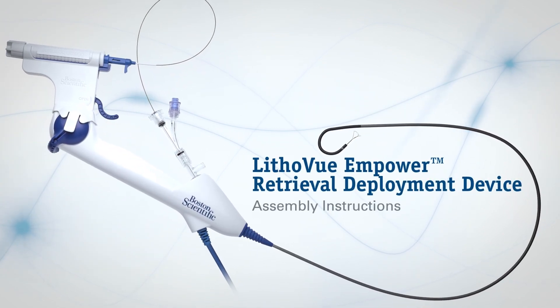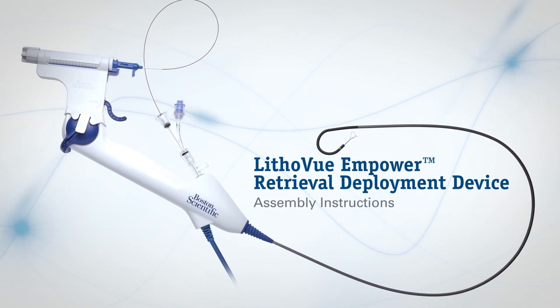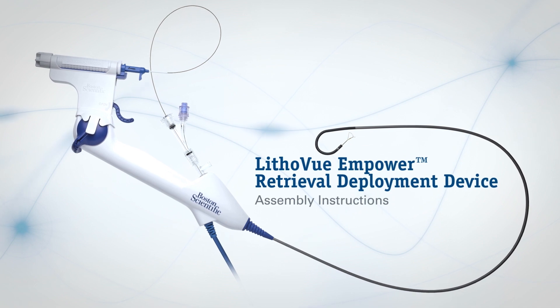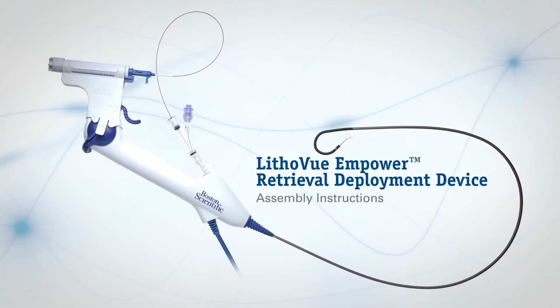This instructional video demonstrates how to connect the LithoVue Empower retrieval deployment device to Boston Scientific's LithoVue single-use digital flexible ureteroscope and nitinol retrieval baskets.